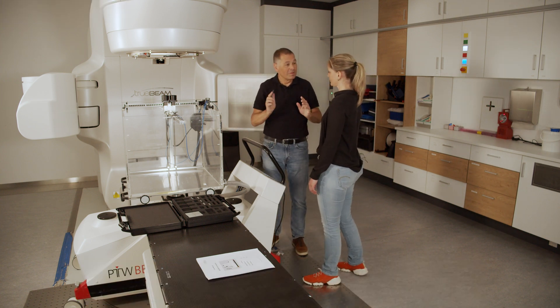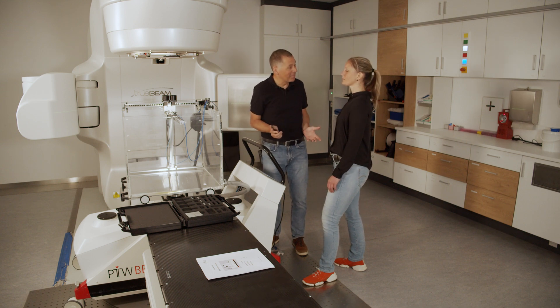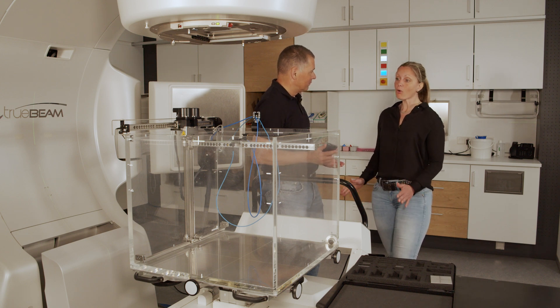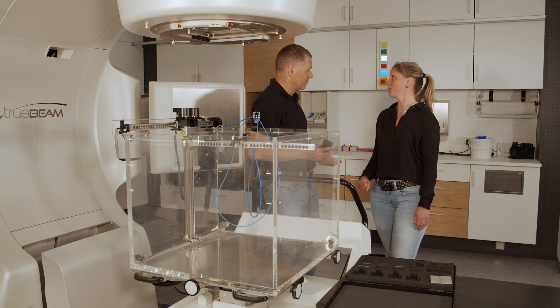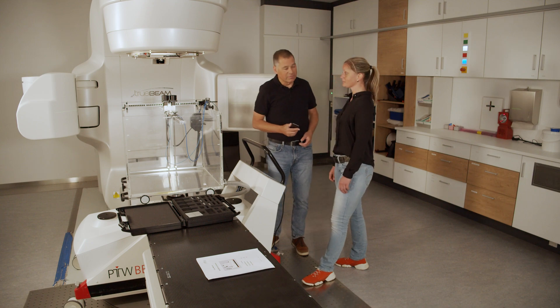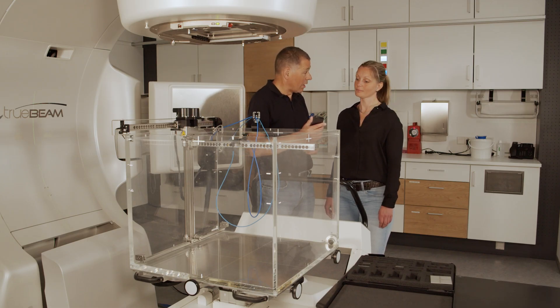And now we move with the lasers to the detector and set a zero point like in the past. You don't have to set a zero point — it's a BeamScan. You only have to trust TruFix and BeamScan and let them do the work for you. Just fill the phantom with water. Okay, we leave the zero point. There's a 'fill water to sensor' function, which we will do now.